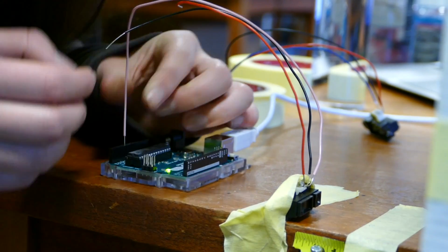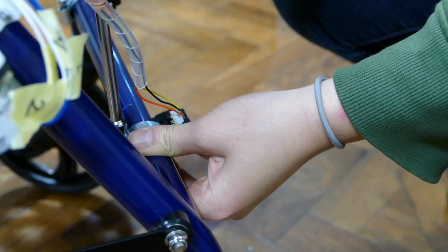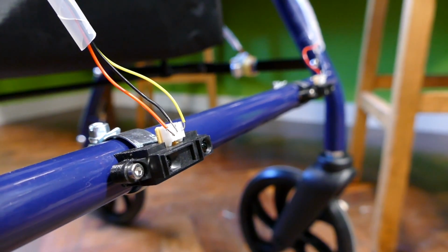So my part is the obstacle detection algorithm, which works closely with the navigational control. What my part does is use infrared sensors to measure a voltage relating to how far away an obstacle is from the walker and relate this back to our system. This is then used to calculate the necessary activation ratio to be applied to each of the brakes.